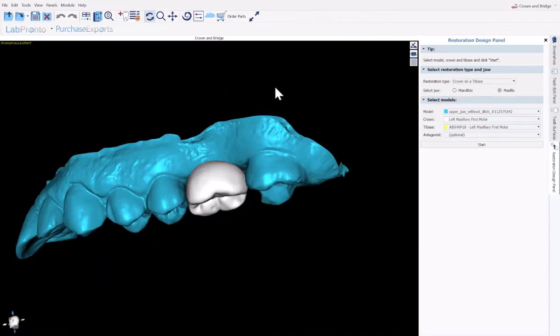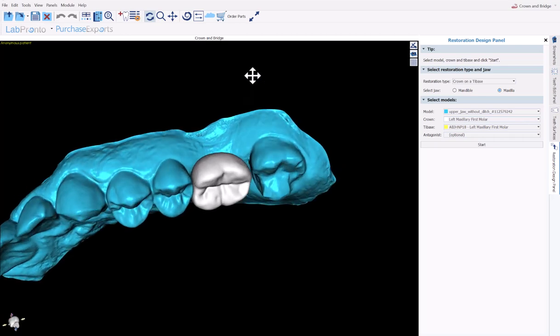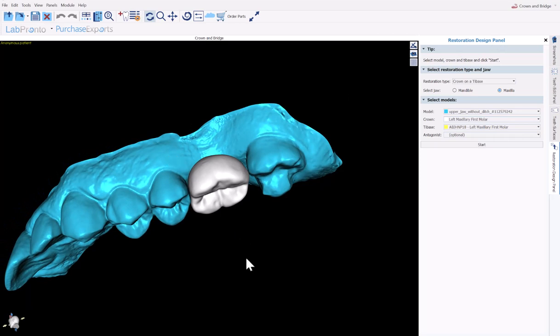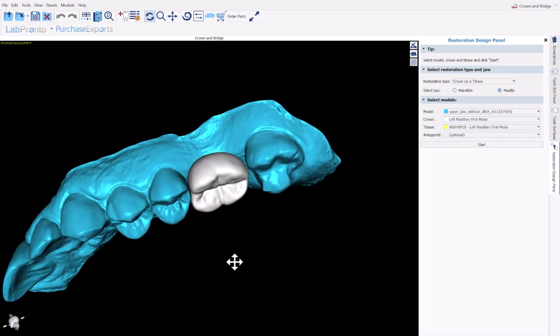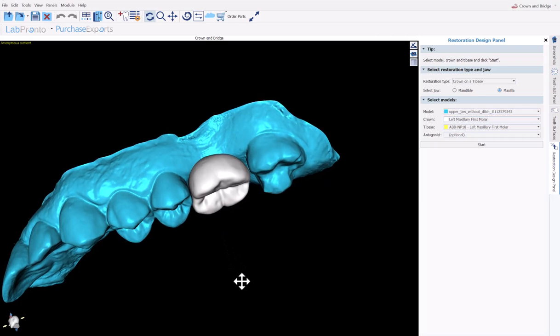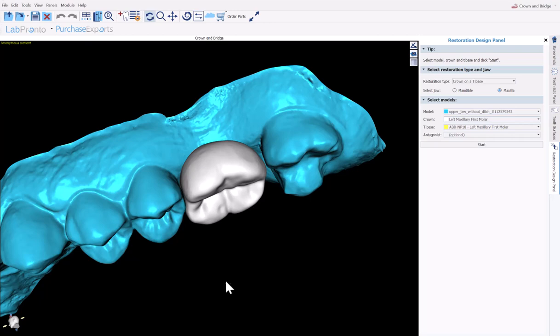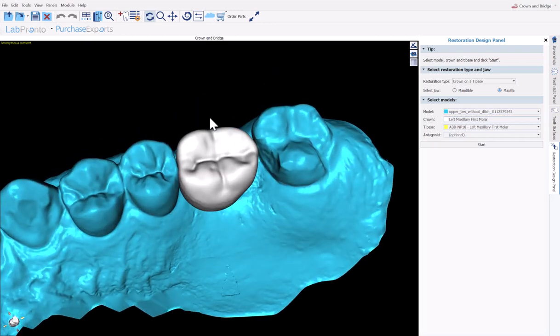Now the process of creating the crown is really just a few clicks at this point via the restoration design panel. But before we do that, let's discuss if you do want to make modifications to the tooth. This is our first release of the automatic tooth design. If you run into any problematic cases, please send them to us so we could continue to improve and iterate using the machine learning artificial intelligence. This case itself has a bit of a problematic second molar here.